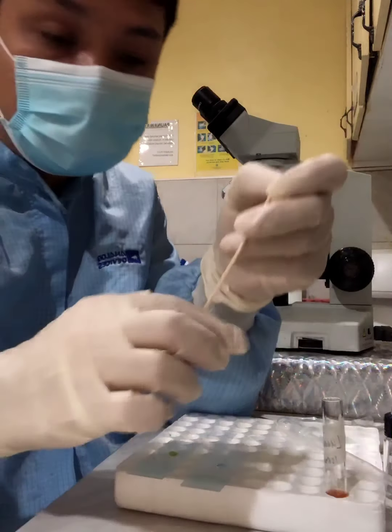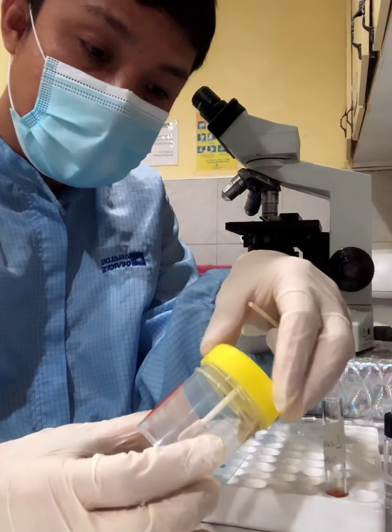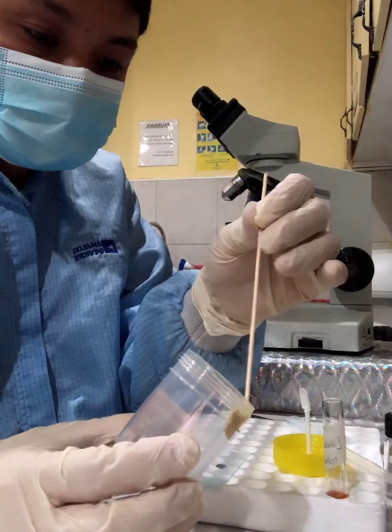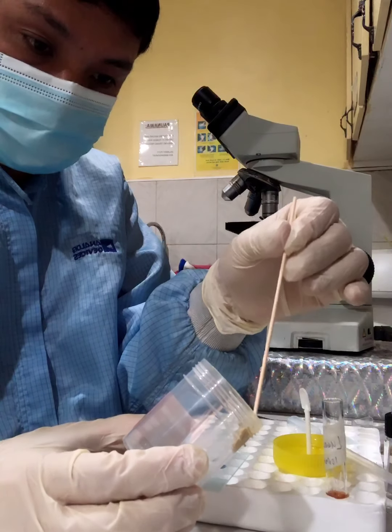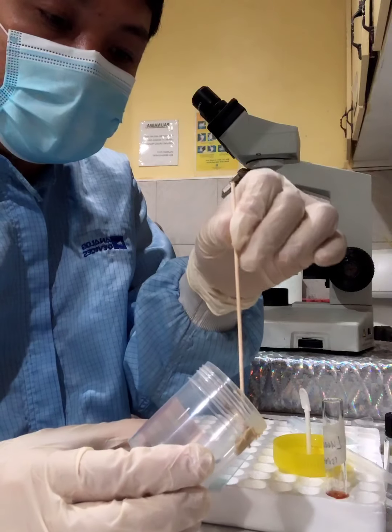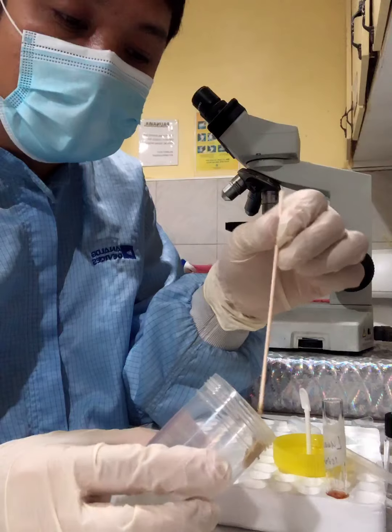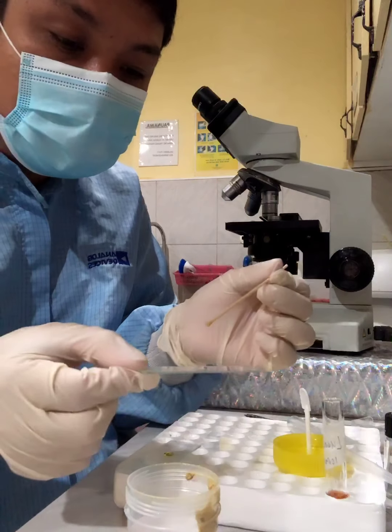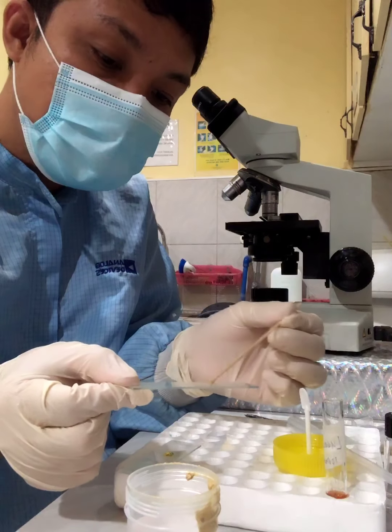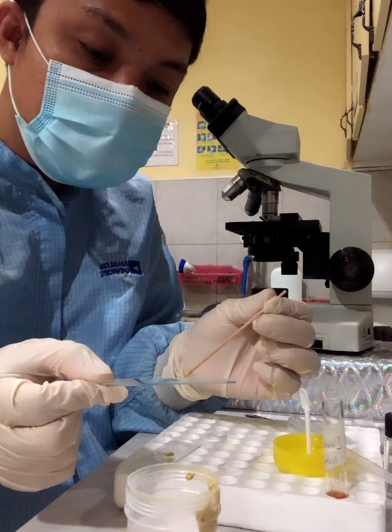Then with our fecal sample, you just need to pick here a portion of your stool sample using your applicator sticks. Make sure that you try to pick from different parts of the stool sample in order to recover your parasites. Then allow it to mix with your drop of NSS and prepare it, making sure that it is thinly smeared.